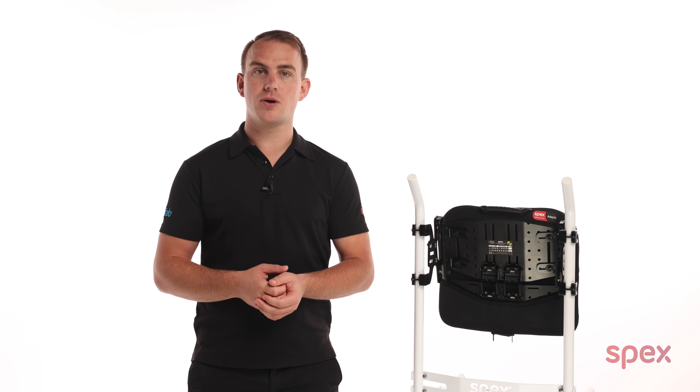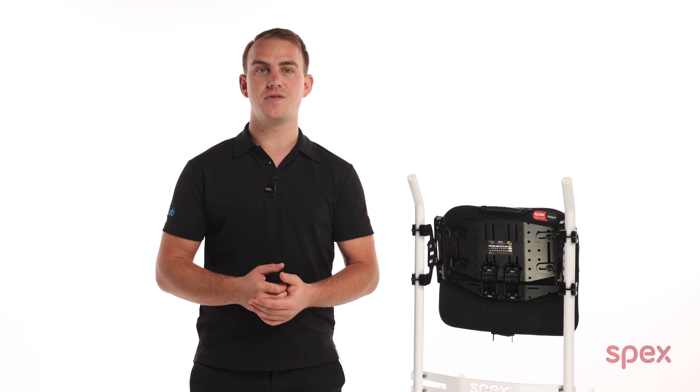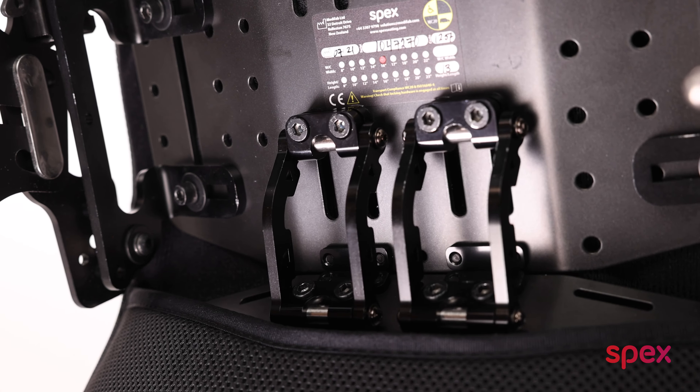If extra foam is required to accommodate prominent spinous processes, we recommend the custom foam padding overlay, which will provide a more comfortable pressure relief experience for the user.